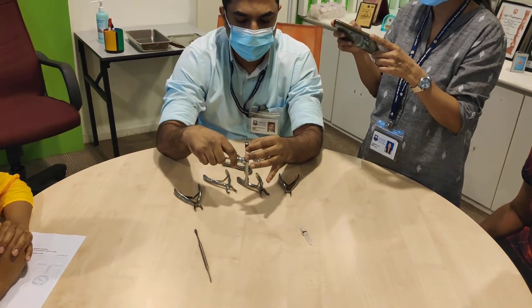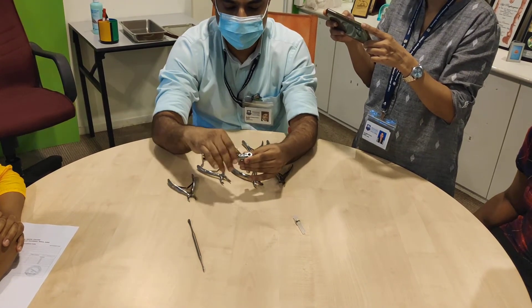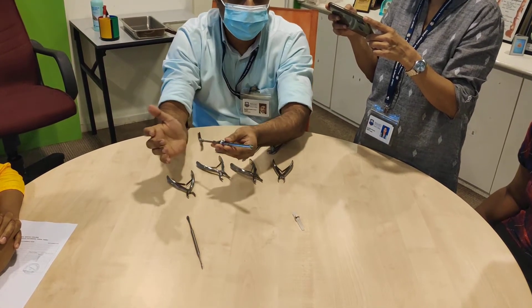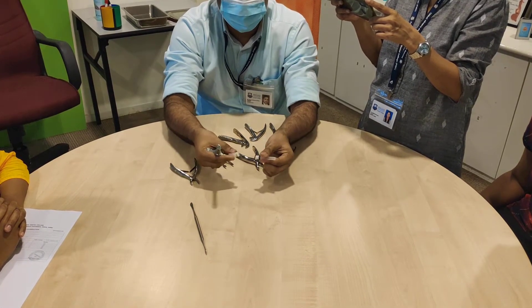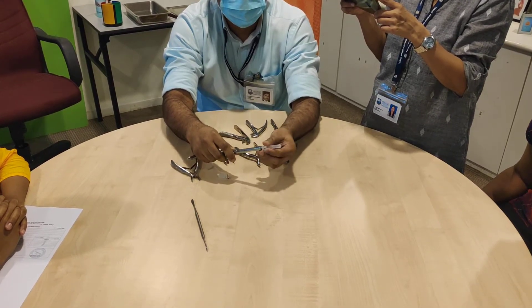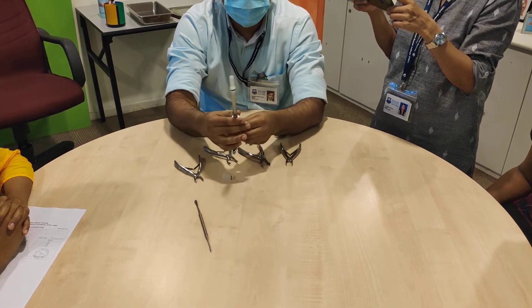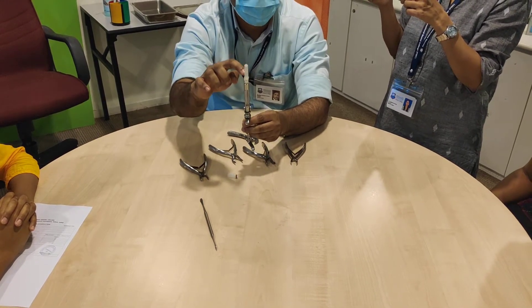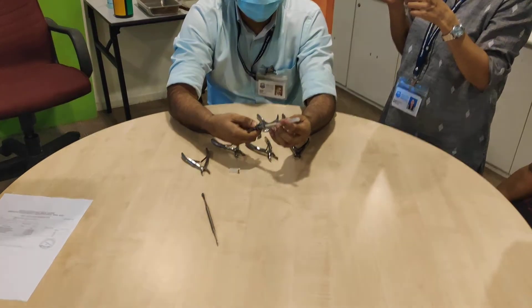Then you need to pull this back. Then the needle — twist and pull, and then this goes inside. Push. And then tighten it. Then express some LA solution through the needle so you know that the needle is not blocked. And then you are done with the loading part.